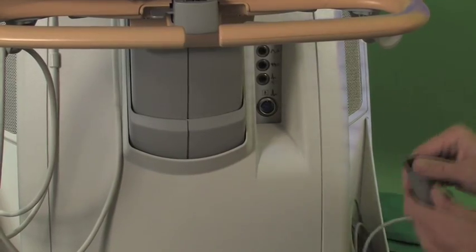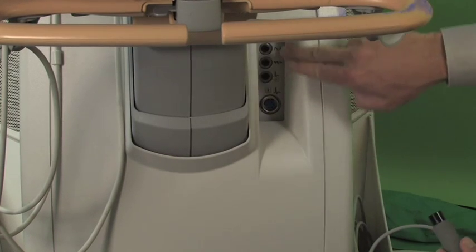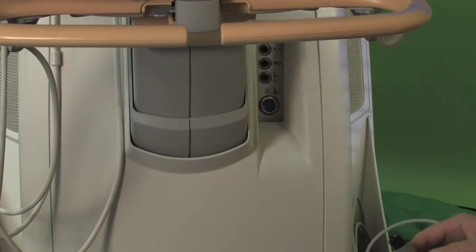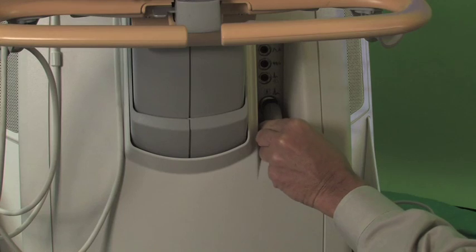The ECG cable connects down below in the front, and there's other phono cables and connections and so forth there as well.